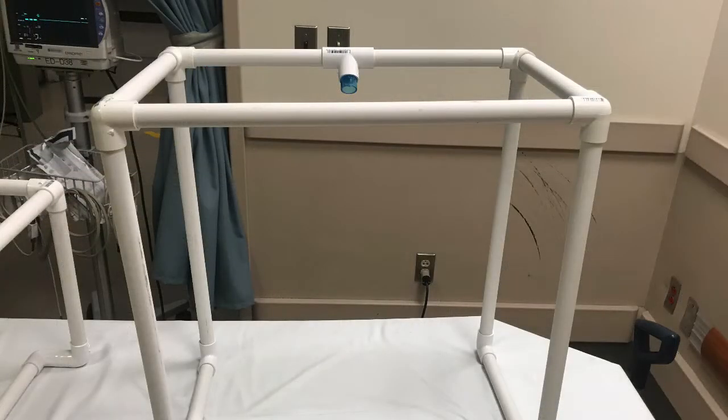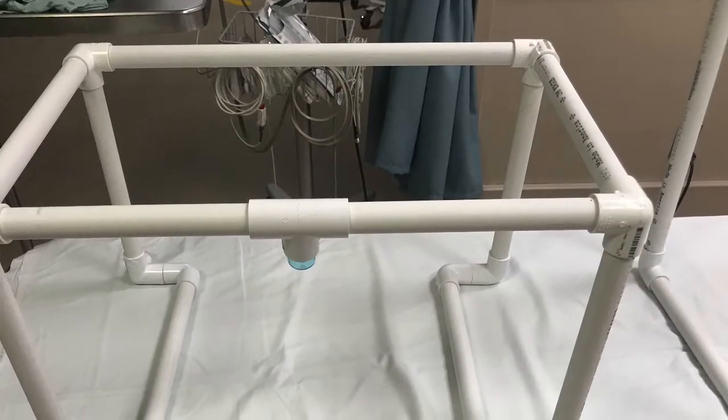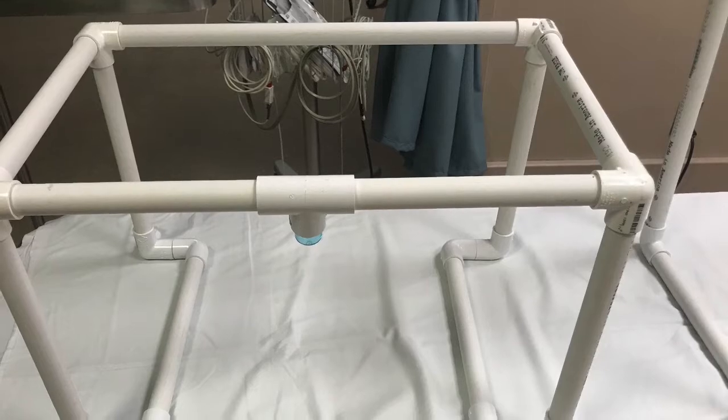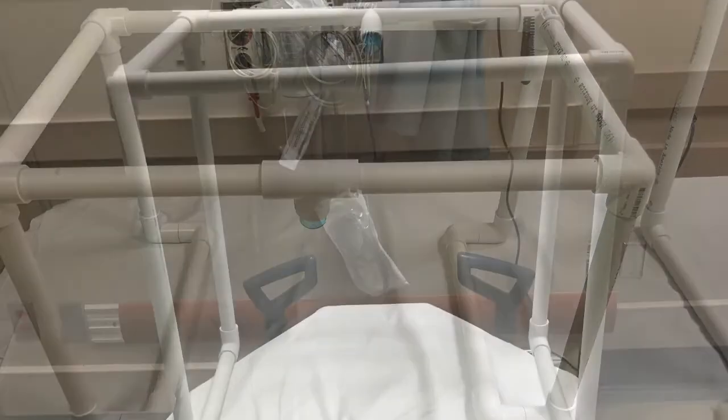There are two types of enclosures, the tall or regular NPE and the short, smaller, and narrower NPE light, useful for the CT scan gantry, the operating room, and the cath lab. Functionally the same, but for this demonstration we'll use the regular.